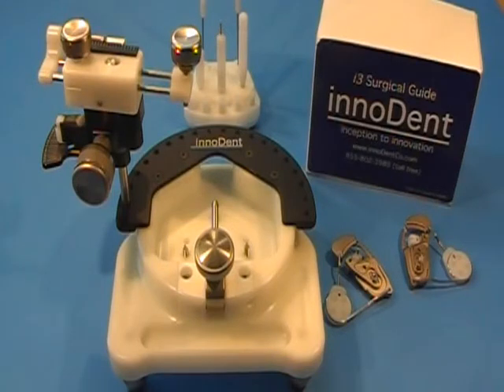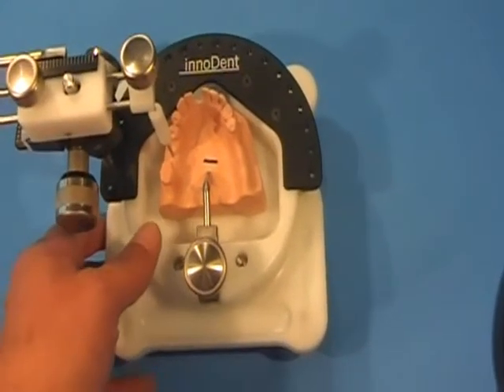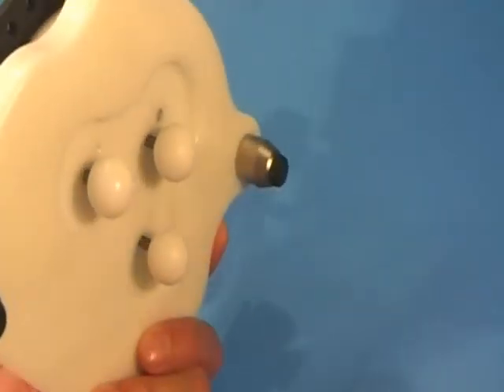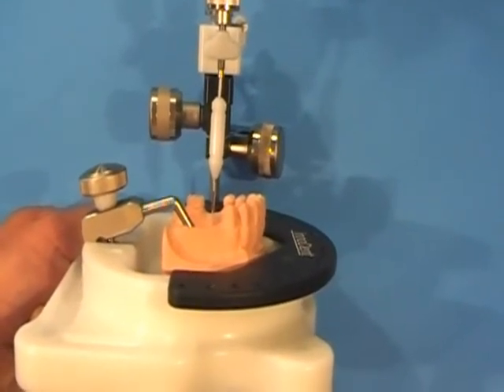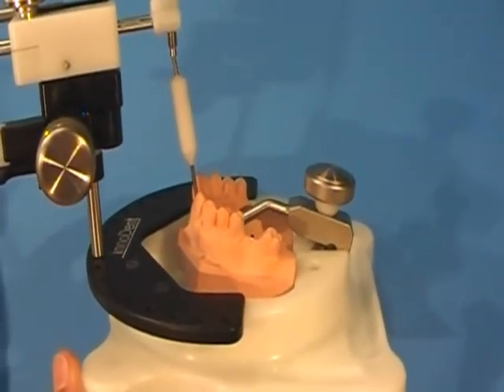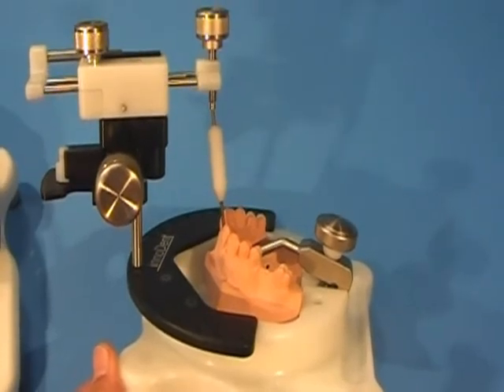The guide station has four unique features. First, it has a built-in tilt table, which is easily adjustable with these three knobs right on the bottom. This helps keep your model level during the planning phases.